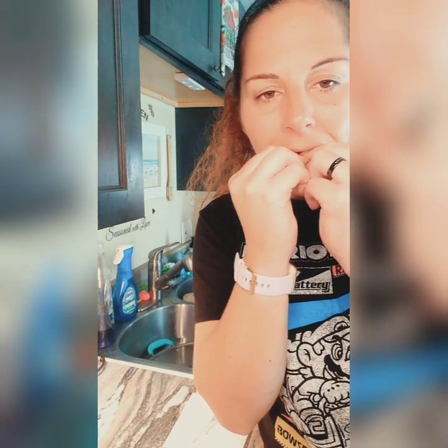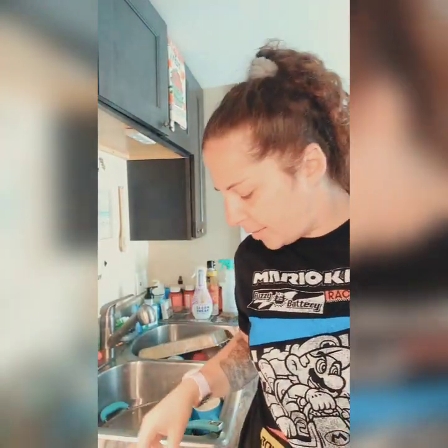I try to avoid the frenulum — I wish I could get that thing out because I keep gluing it to my denture. When I had my immediates, the more my denture went up the more my frenulum killed me and I kept having to use those little emery boards — which are a godsend — on my frenulum. I push the denture forward, put my thumb there, press up a little. It's coming through my frenulum again — this helps to get the adhesive out of it.